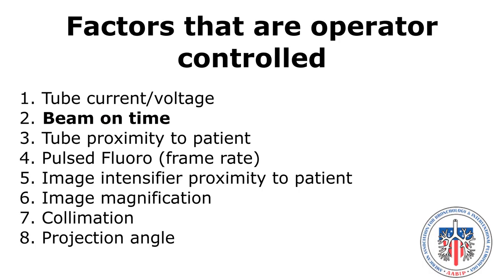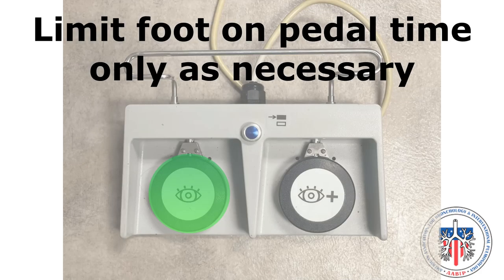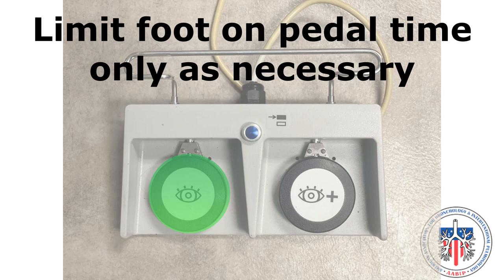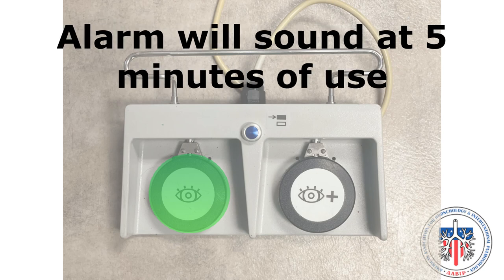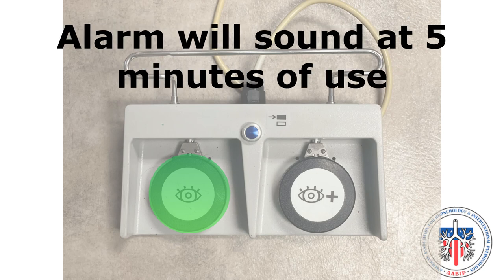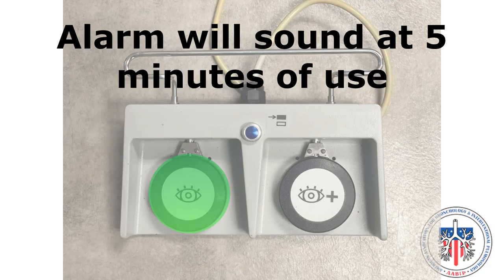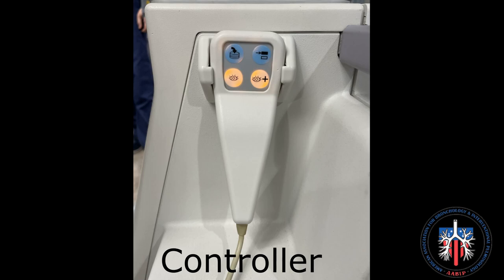Beam on time: limit foot pedal time as much as possible. An alarm will sound at 5 minutes of use. A hand controller permits staff to distance themselves from the C-arm and reduce radiation exposure.